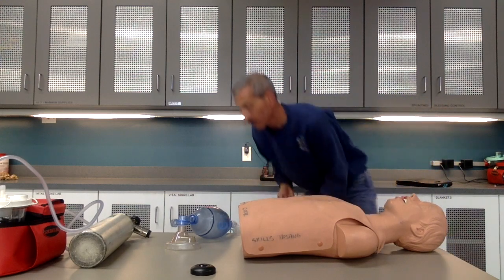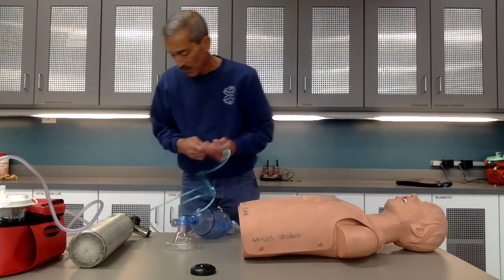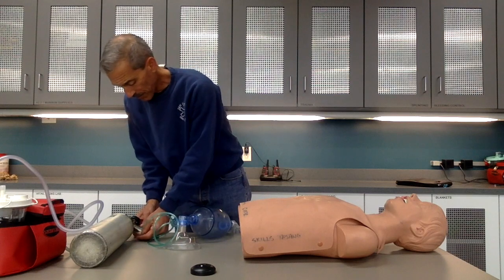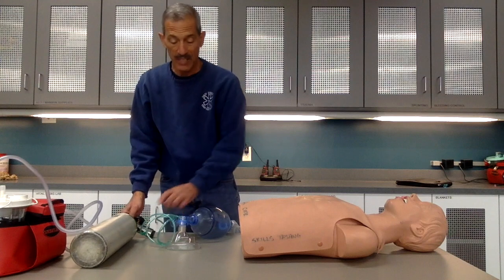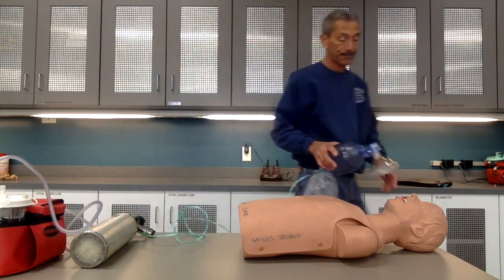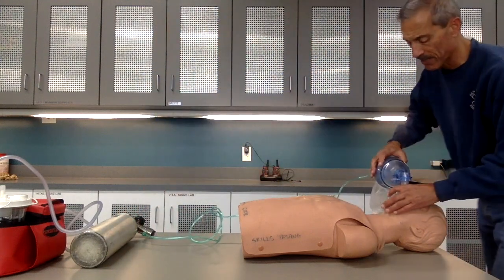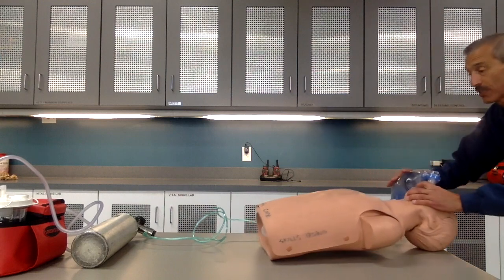I'm going to hook up my oxygen to my regulator. I'm going to turn on my tank, half a turn, set the regulator to 15 liters. I'm going to come back over here, reacquire my CE grip and seal, head tilt, chin lift.